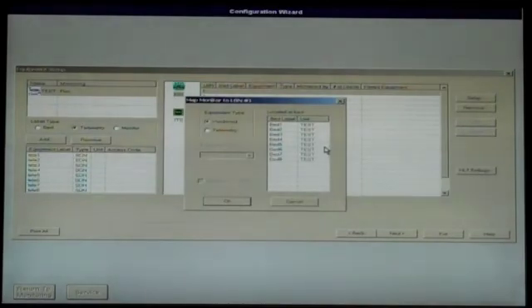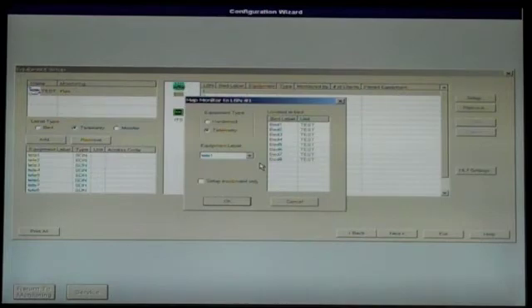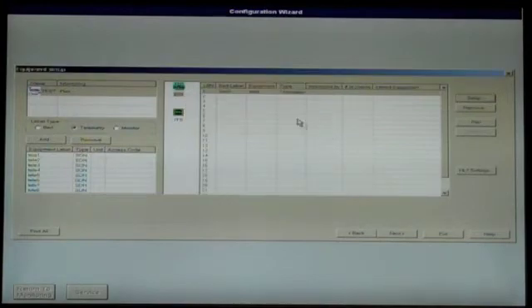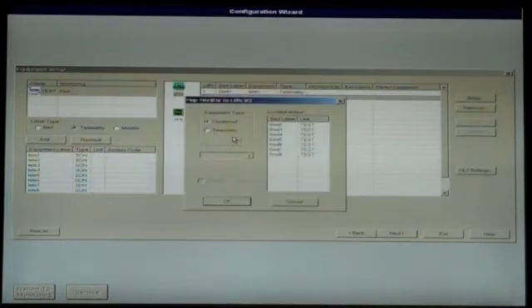In the pop-up screen, select Telemetry, then Equipment Label on the drop-down list, followed by the bed label desired, and click OK. Repeat this process for all previously programmed beds and telemetry.